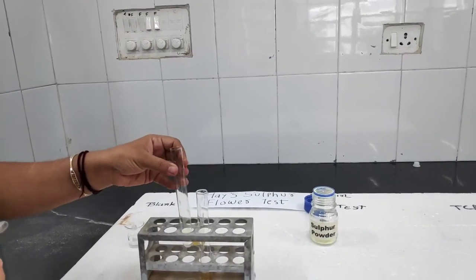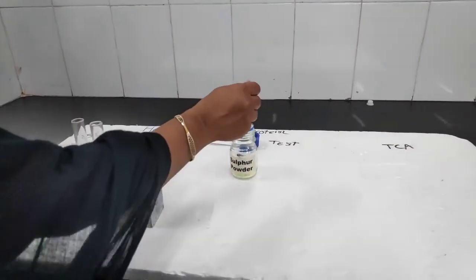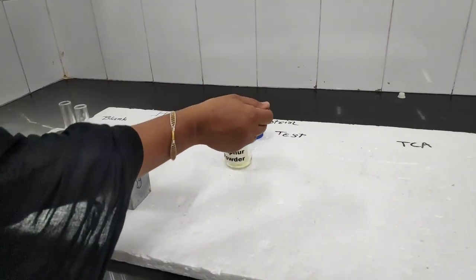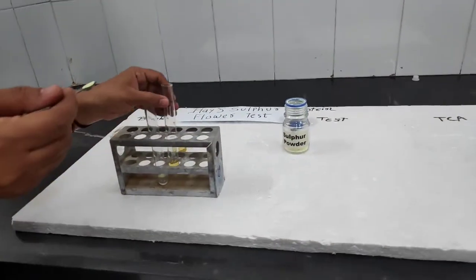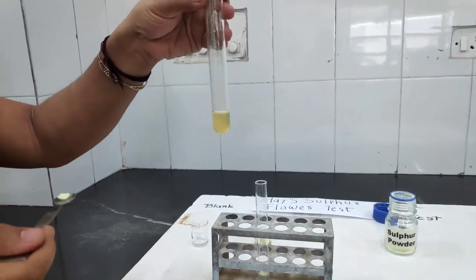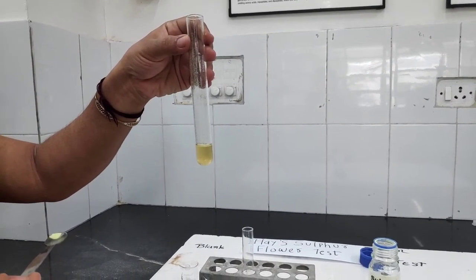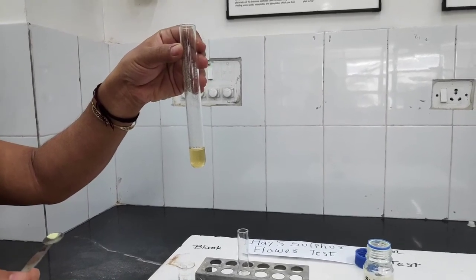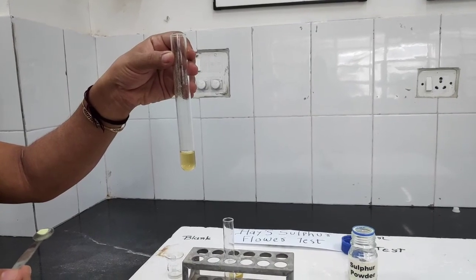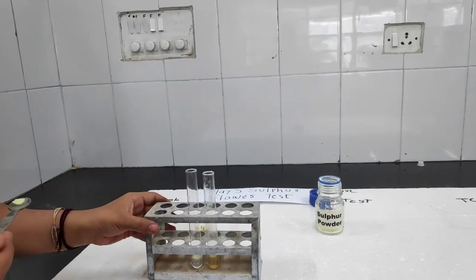If there is a presence of bile salts, the sulfur powder will sink to the bottom. Now we will add a pinch of sulfur powder to the urine sample. As you can see, the sulfur powder is sinking to the bottom of the test tube. That means there is a presence of bile salts in the urine sample, because bile salts reduce the surface tension, making the sulfur powder sink.